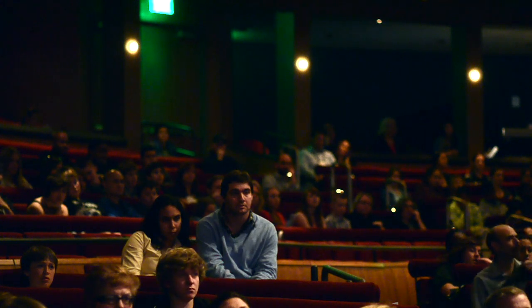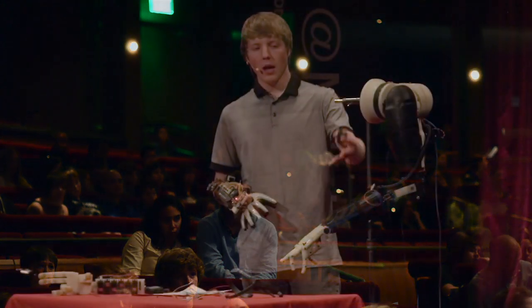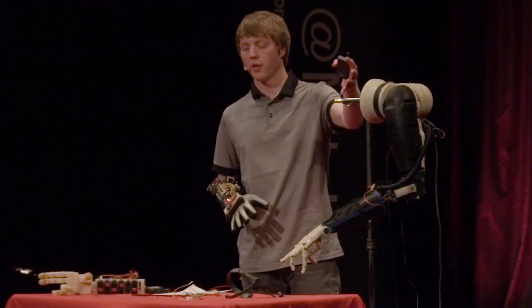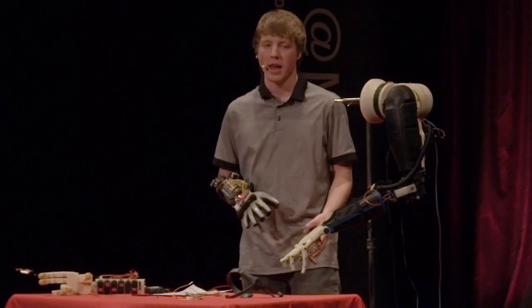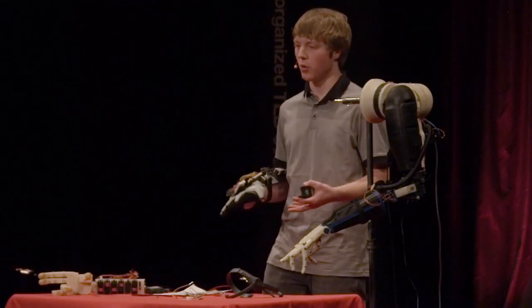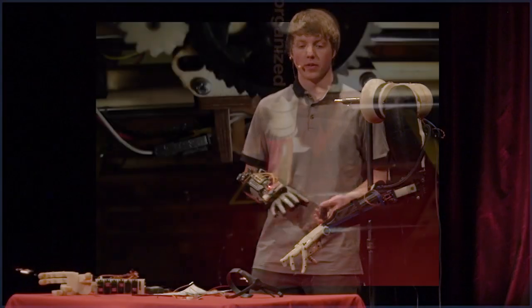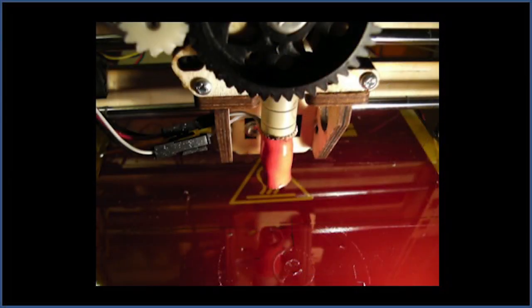This is where it's at now. I designed every part in a CAD program. The reason it's so low in cost is that it's all 3D printed, which is a really cool evolving technology.